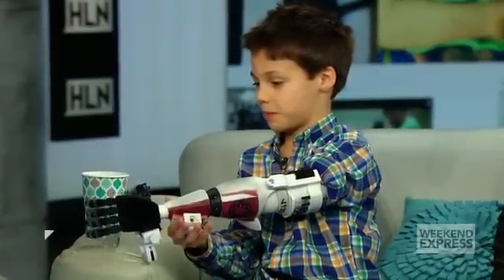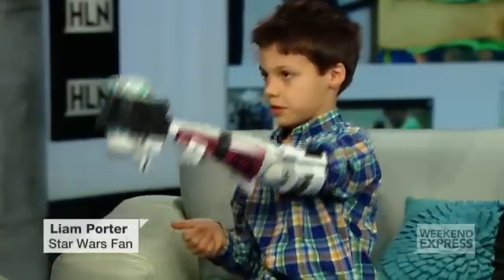Like a superhero, basically. I'm getting used to using this arm. How awesome is that!